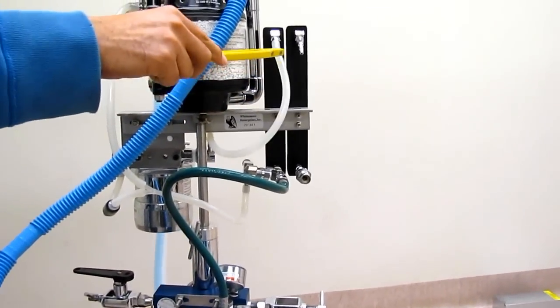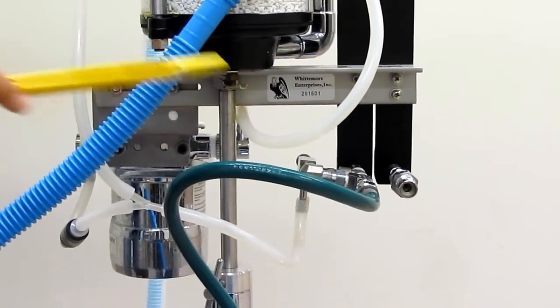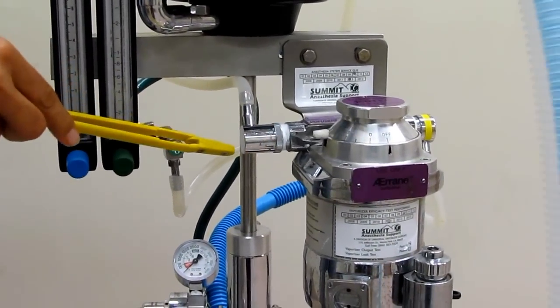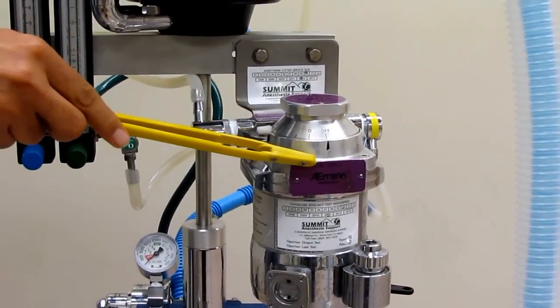If we go through the flow meter, we will exit through the top of the flow meter on the back here and go through this hose here. We're coming out at about 12 to 15 psi. Then we will come back towards the front of the machine into the vaporizer inlet. The vaporizer inlet is where fresh O2 gas comes into the vaporizer.